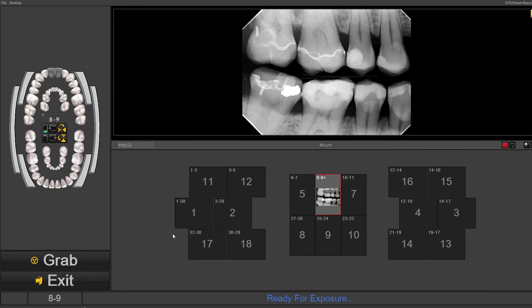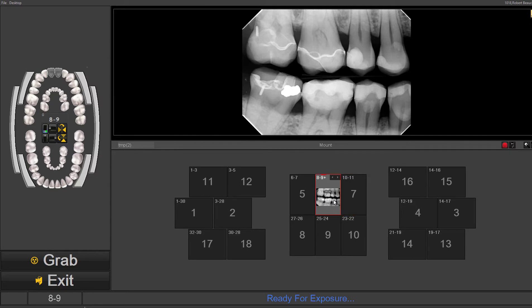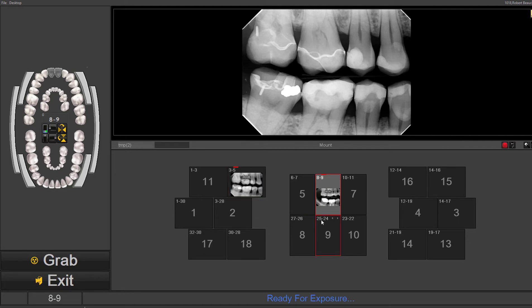If you ever take it in the wrong box, it's very simple. You click on the x-ray — it highlights light gray — and you can drag and drop it and put it in the proper place.